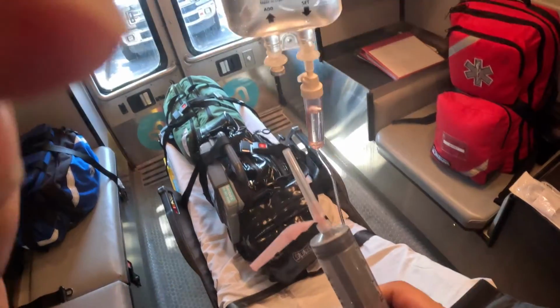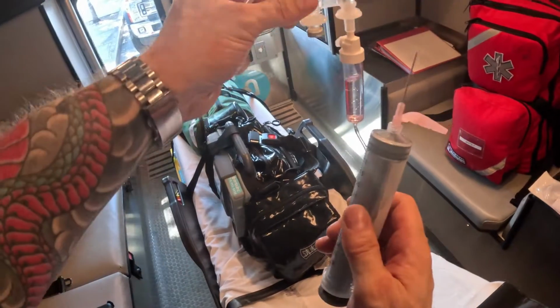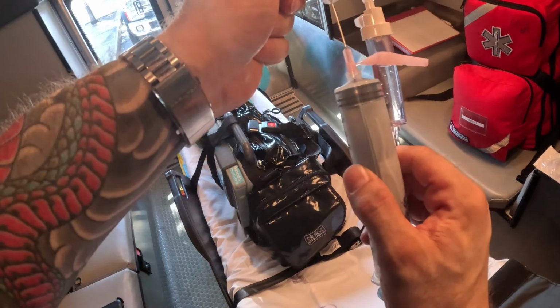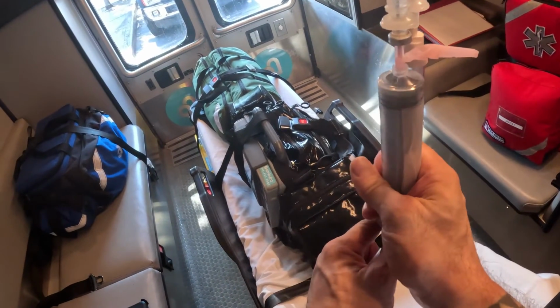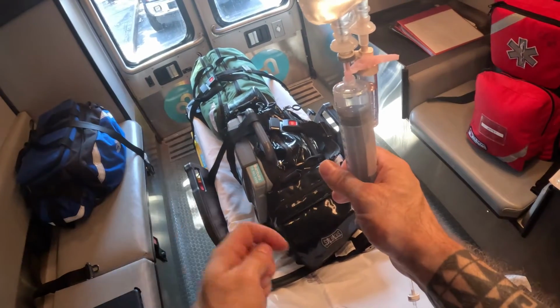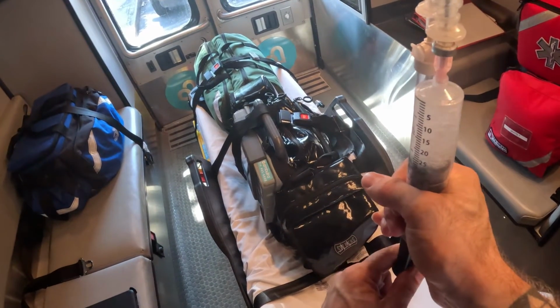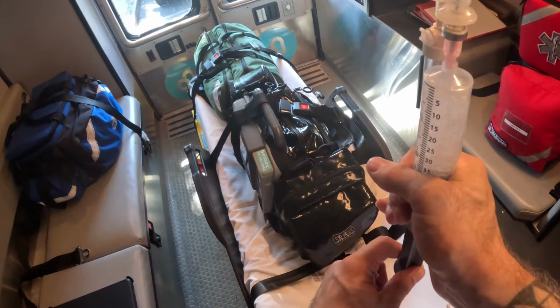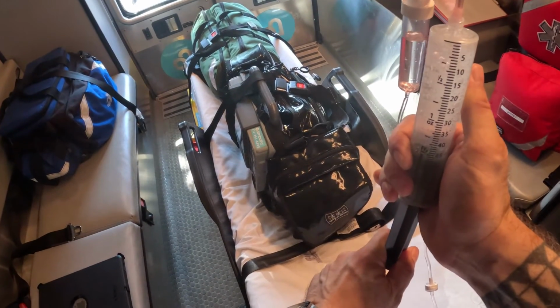Take my syringe, make sure it's in focus, and I'm going to essentially penetrate, and then I withdraw. And you see the reason why I told you to use an 18 gauge needle or bigger. See how it's hard for me to pull? If you use a 25 gauge, it would basically be impossible for you to do this. I'm gonna fill this up until I have 60 mLs.